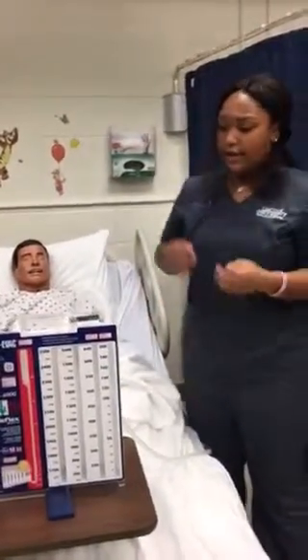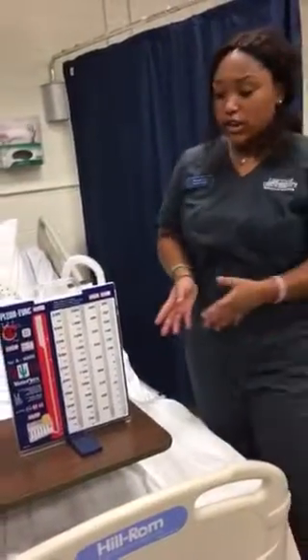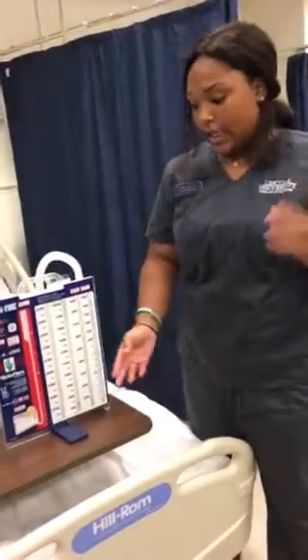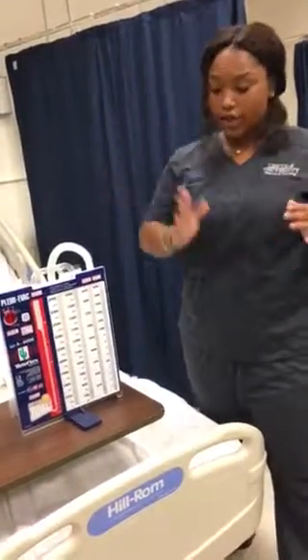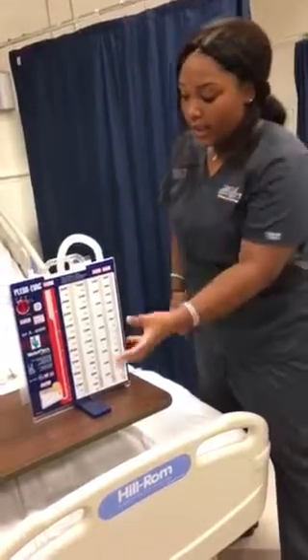So basically, this is the PLEUR-EVAC, and this is what the chest tube drains into. So there's a chamber for normal saline, which is the water chamber, and it's typically lined up to 2 centimeters, and when it's flowing properly, the water should wave like the waves in the ocean, but when it's not, it will start bubbling.